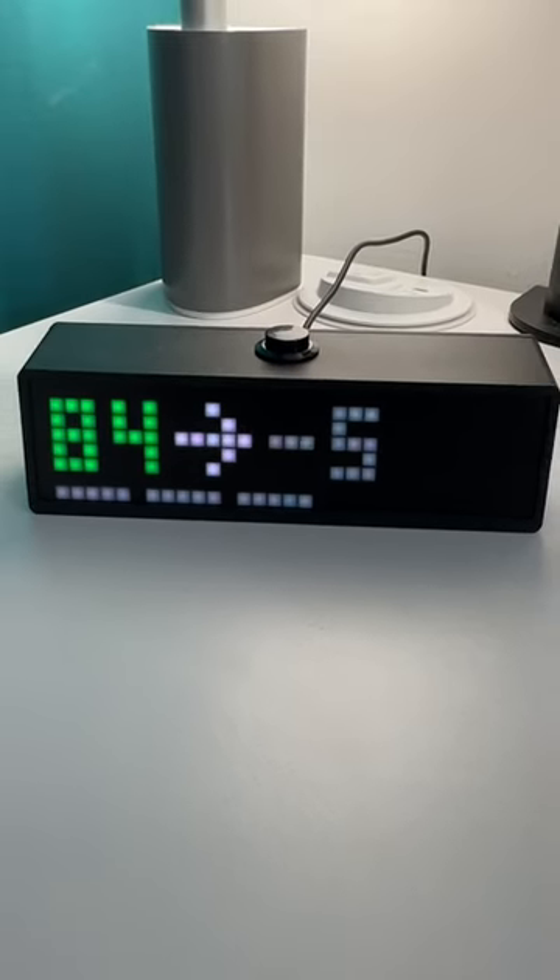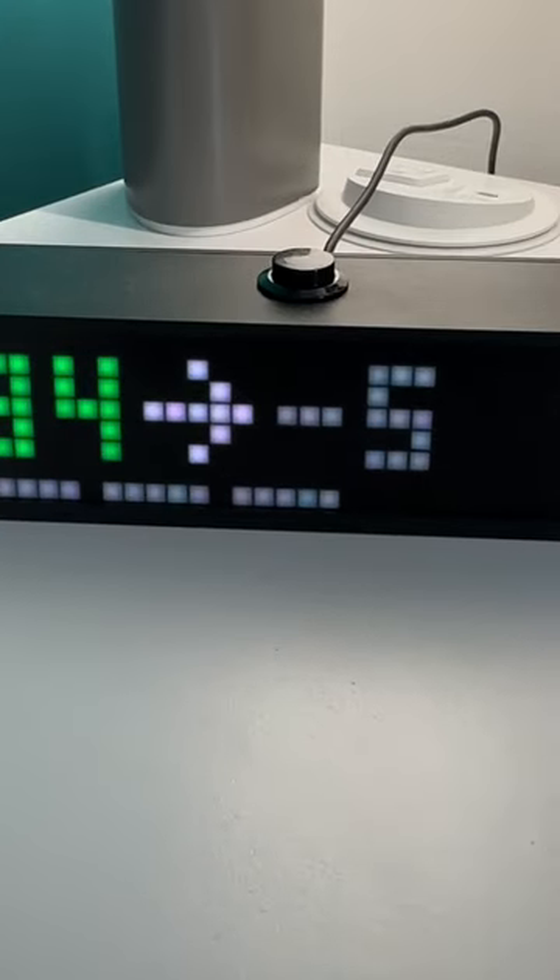This is my favorite display setting. Along the bottom are lines, which signify the five minutes between each reading.